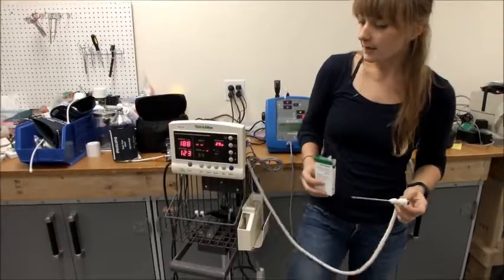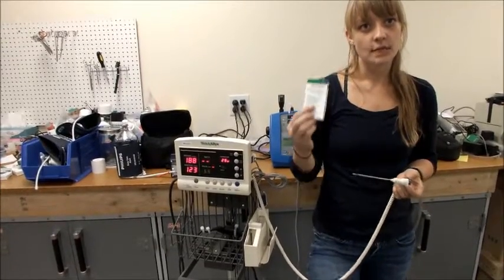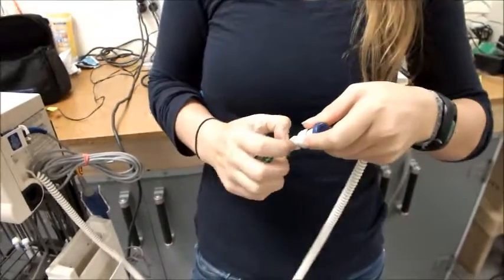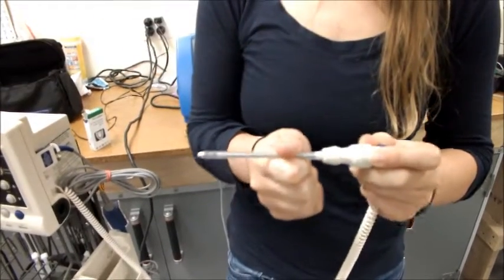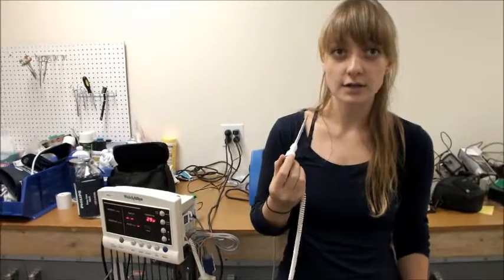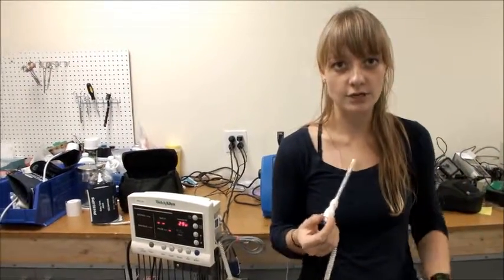If your machine has temperature on it, that's the next thing you're going to need to test. To do so, you're going to need a box of disposable thermometer covers like these. Simply insert the probe into one of the tubings and make sure it clicks all the way on. Then you're going to insert this into your mouth and wait for a reading of close to body temperature. Body temperature is 98 degrees Fahrenheit or 37 degrees Celsius. As long as you can see the thermometer climb up to within that range, you're probably good.